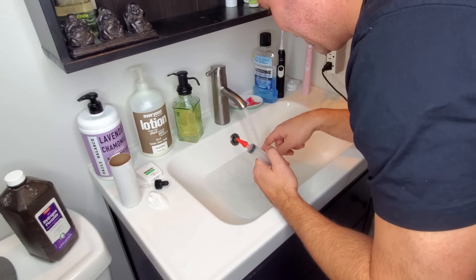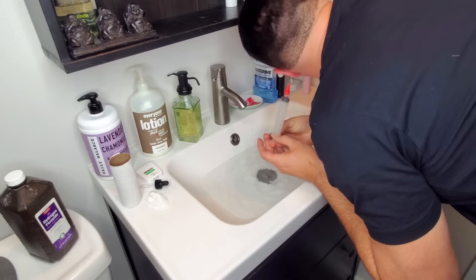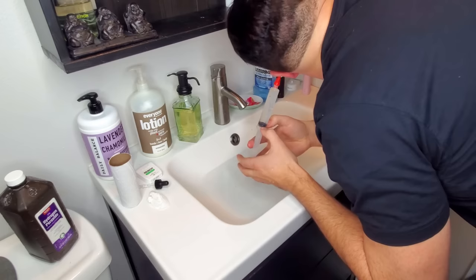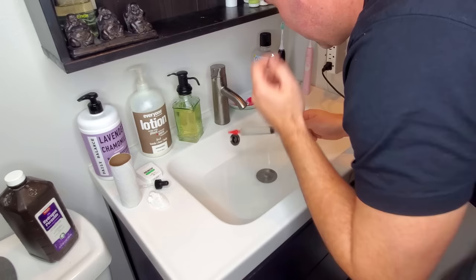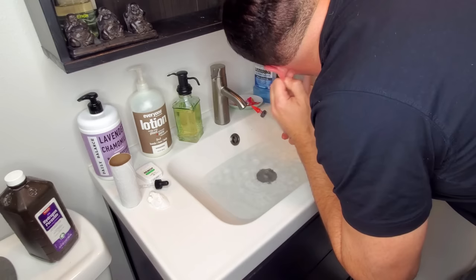Now we're at warm hot. I'm going to fill it all the way up, bend over, put the red part in your ear, and then just empty the water. The first couple times I did this, it took some getting used to because it is really loud in your ear when you're spraying it. I do about 15 to 20 pumps and then shake my ear. If you've never done this, you might notice chunks of wax starting to fall — it's kind of gross — into the water. But you'll almost always notice your hearing increasing the more you do this, because it's breaking the wax loose, which is kind of like an ear plug that's been affecting your hearing for quite some time.